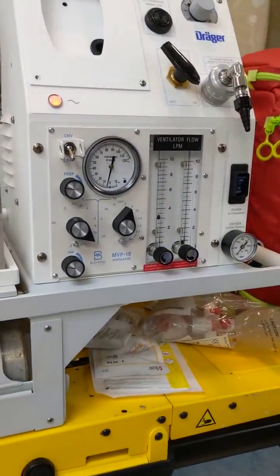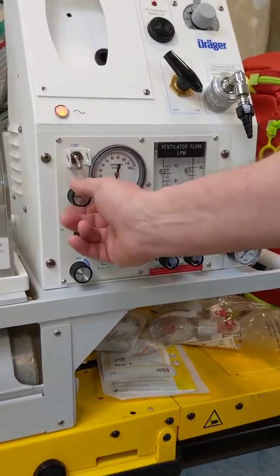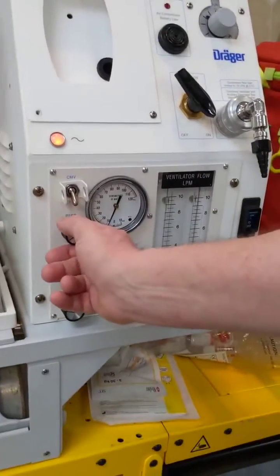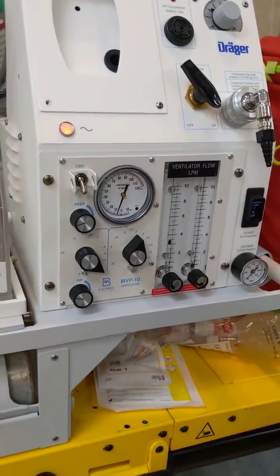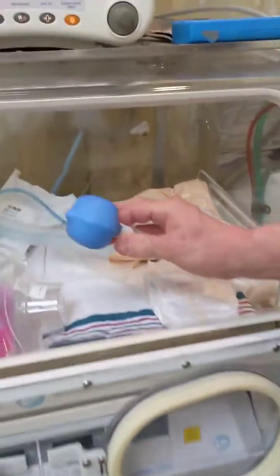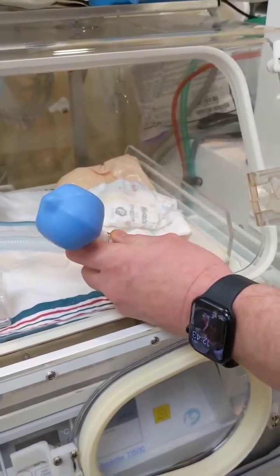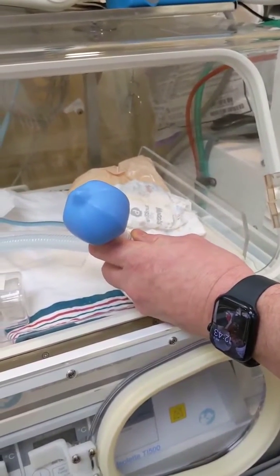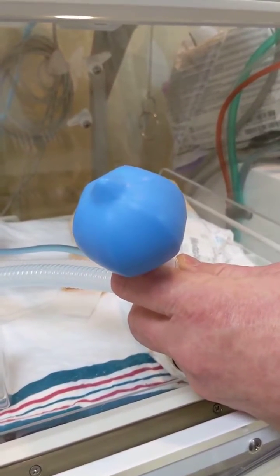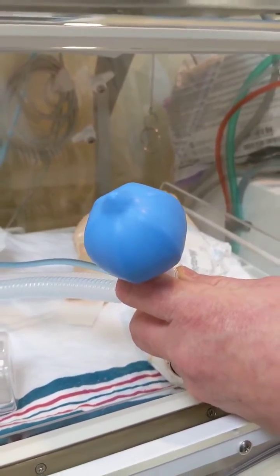When I switch the Draeger into CPAP mode, my needle's no longer moving. It's not cycling breaths at whatever interval. It's solely relying on this PEEP knob here, and I can turn it to 0 to give nothing, 5, 10, whatever we're going to deliver. Let's say we want our baby on a PEEP of 7 because I like odd numbers. If you look at our ventilator lung right here, it is holding inflated at that PEEP of 7. If I increase it, you can see the balloon grow, and as I close it, the balloon shrinks. So, less pressure, more pressure.